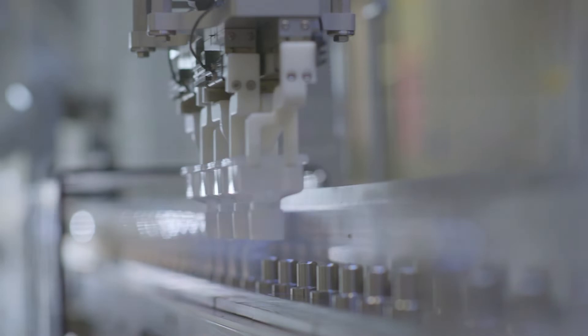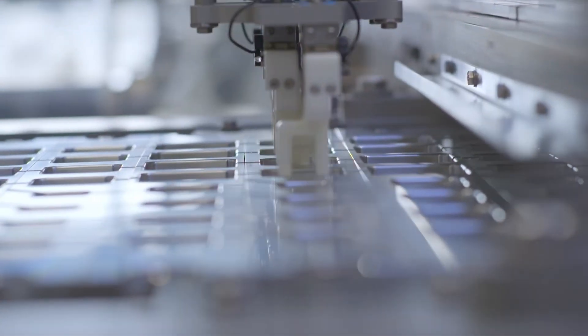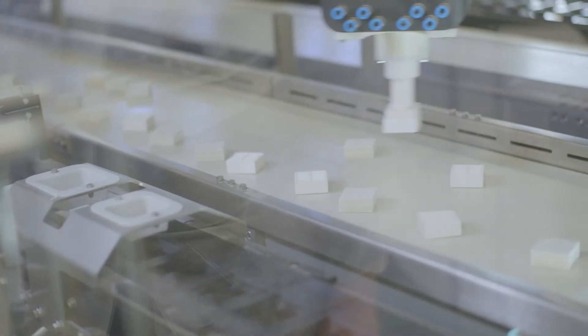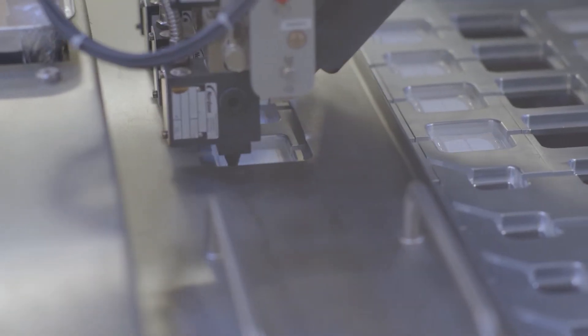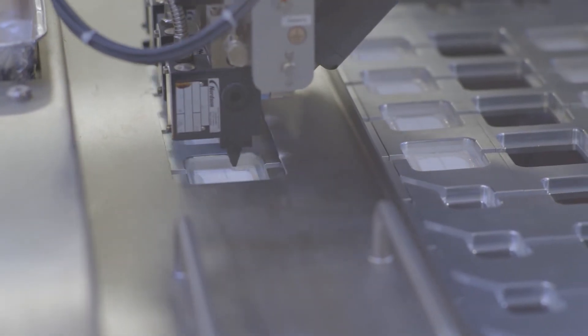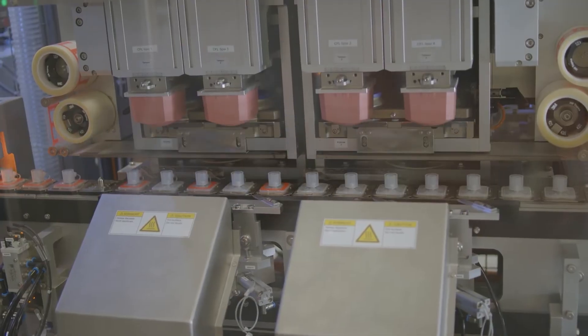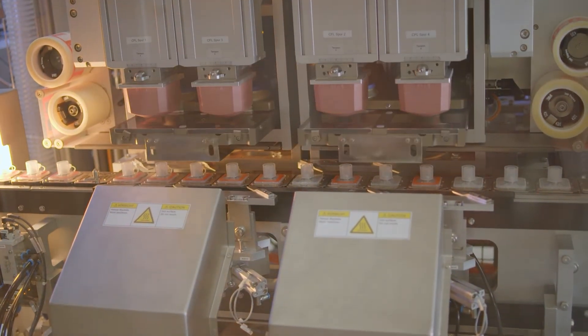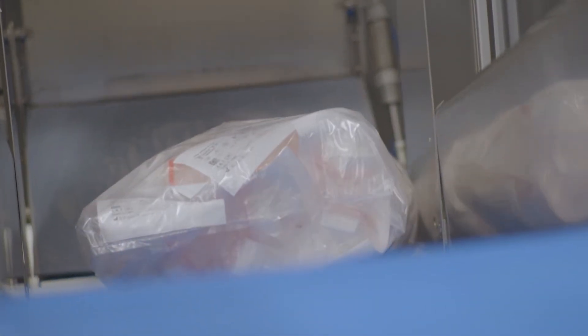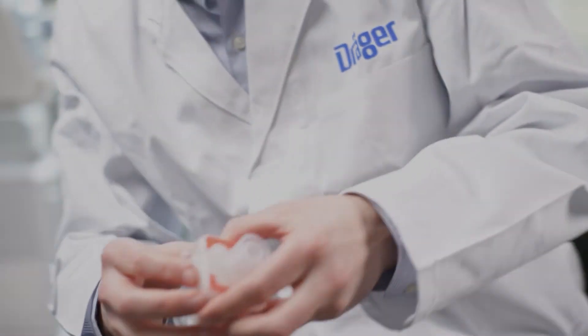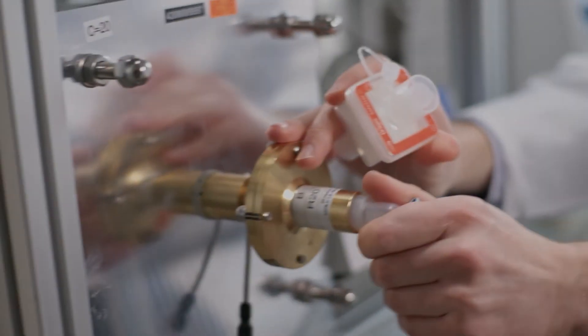Our certified cleanroom. Our filters are automatically and entirely produced in this environment. Then, systematic quality control is carried out here. Further quality testing is done at our in-house testing center.